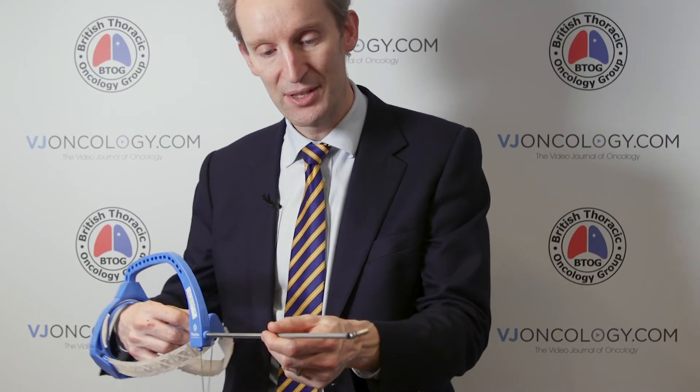I'm actually on my way to America to a conference where I'm going to present the first use in the UK of a new instrument called the FlexDex surgical needle holder. It's invented by an amazing surgeon called Jim Geiger in Philadelphia — a pediatric surgeon — and what he wants to do is bring robotic technology to all endoscopic surgeons, because a lot of people can't afford the robot. What the robot gives us is manual dexterity — your ability to move your hands in the chest — and this instrument brings that, so instead of a static instrument that just goes in and out, I now have the ability to move like a robotic arm.